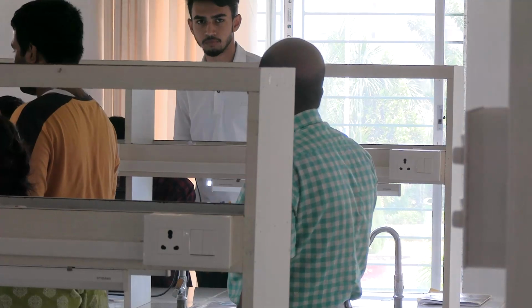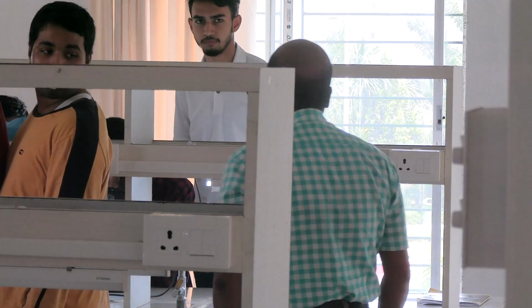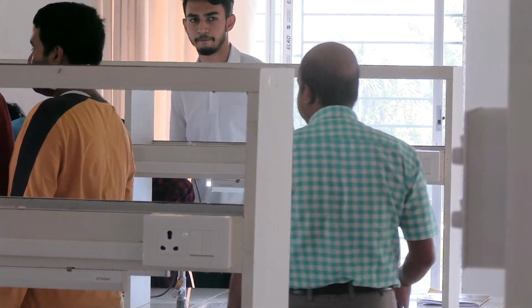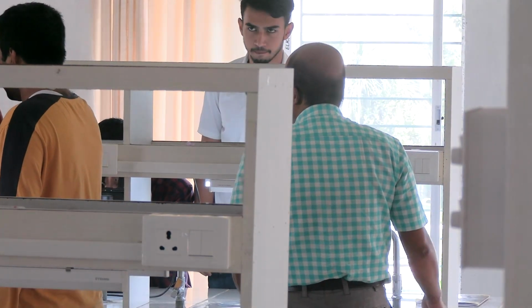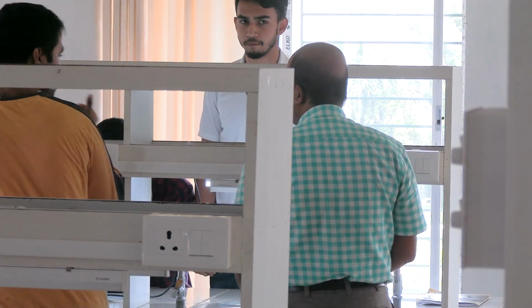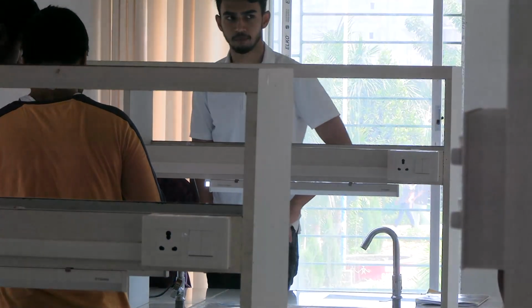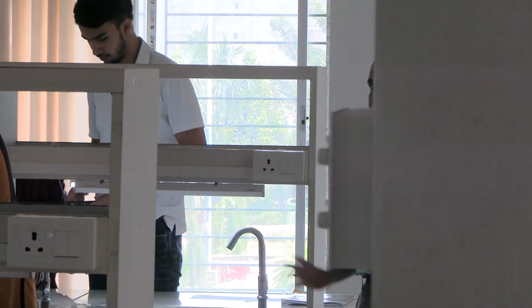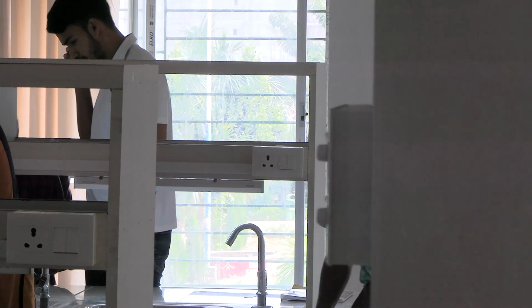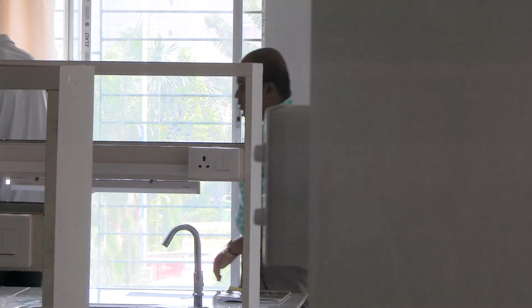Keep some slides and needles for personal use and practice at home. Just the drawing the smear part. Make 2 smears every day for 10-15 days now at least. Otherwise, you won't learn. Doing one time will not suffice. In the exam hall, you can't do anything if you don't practice. Now, staining will not be possible at home, but at least prepare the smear.